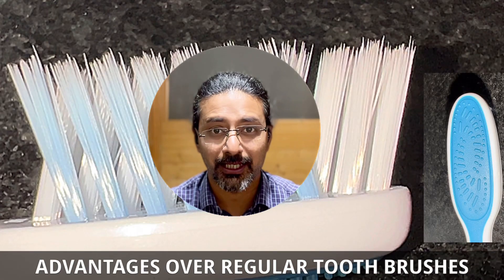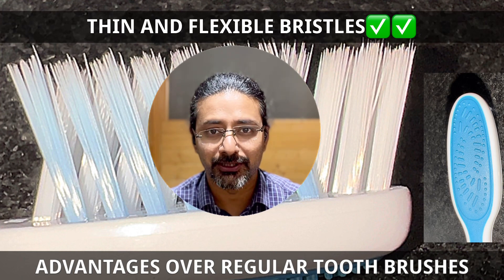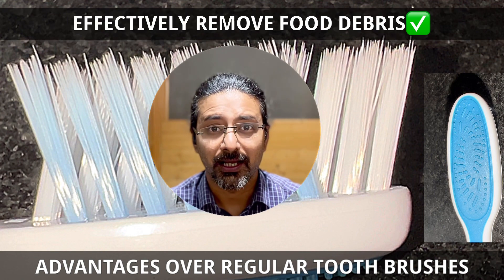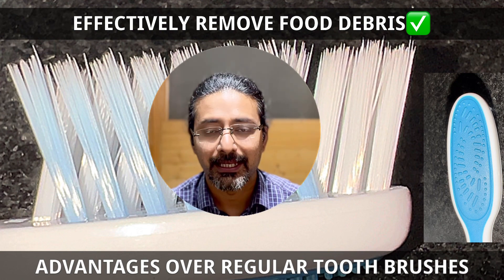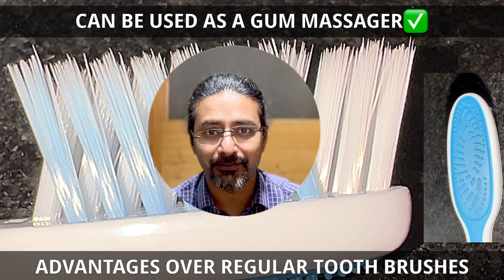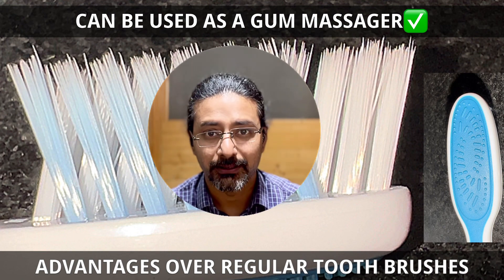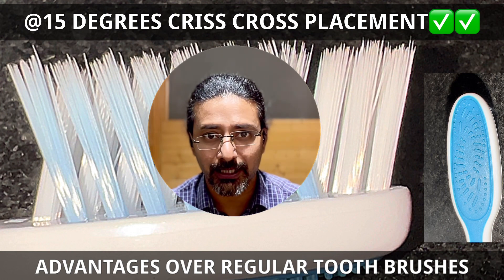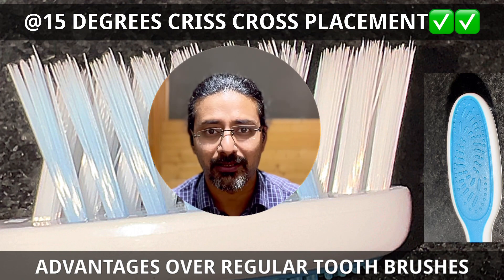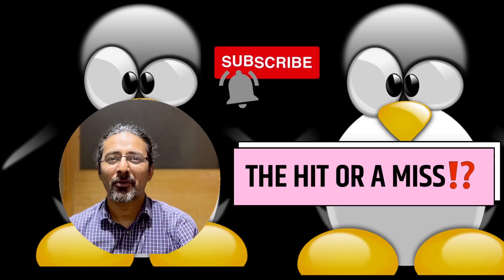We do have the advantages as well. One: the bristles are quite thin, very soft at 0.01 mm, and are actually very effective in removing food debris and softer food particles in between the teeth. Two: these bristles are extra soft, hence can also be used as a gum massager. Three: the bristles are placed at 15 degrees — the crisscross design is really helpful and efficient in removing food debris and soft calculus or plaque.